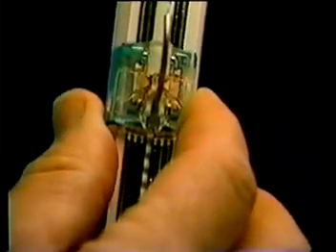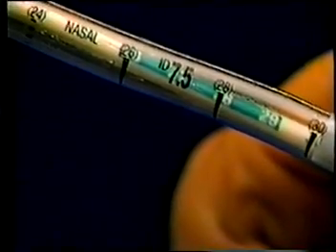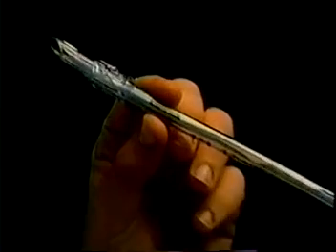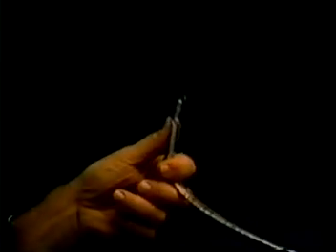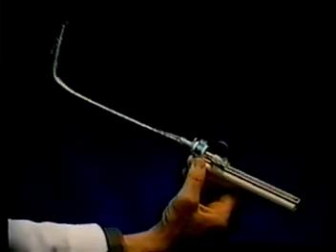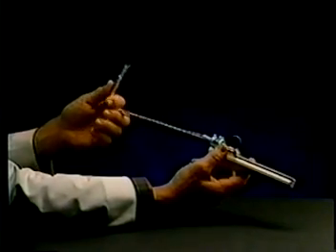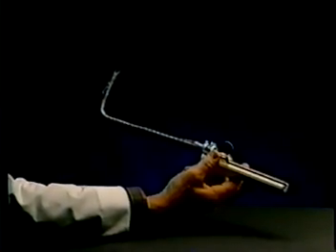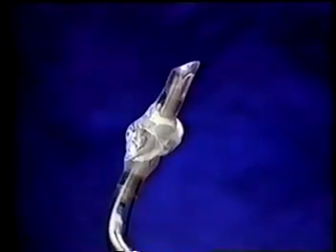Squeeze the release arm and adjust the wand so that the bulb is within the tube, just proximal to the bevel. Note that this aligns to the centimeter markings. Where the wand is marked, make a tight 90 degree bend. Creating this bend accurately is important — a bend that does not form a right angle, is not tight enough, or is too far from the tube tip can make the intubation procedure considerably more difficult. Preparation of the TrachLite is completed by lubricating the tip of the tube.